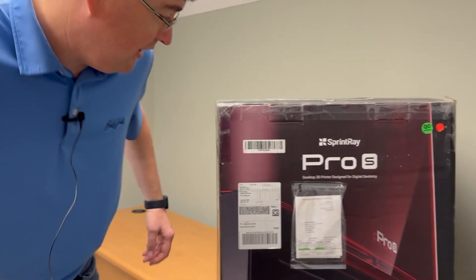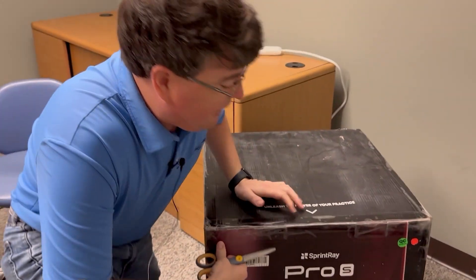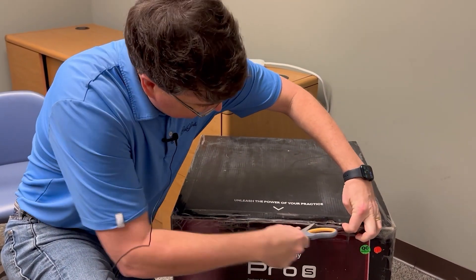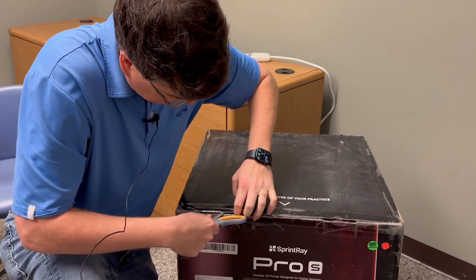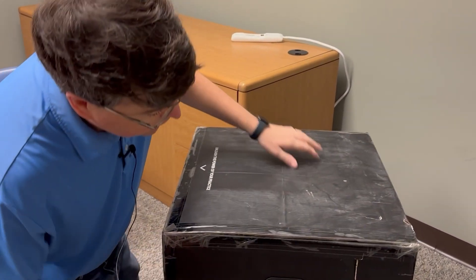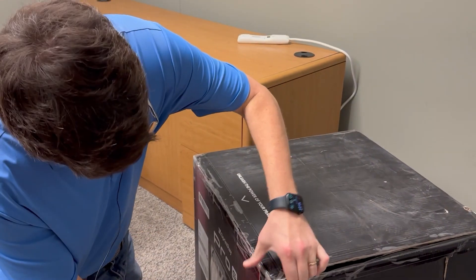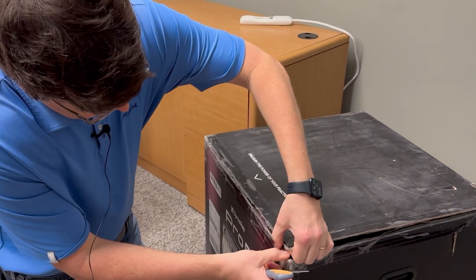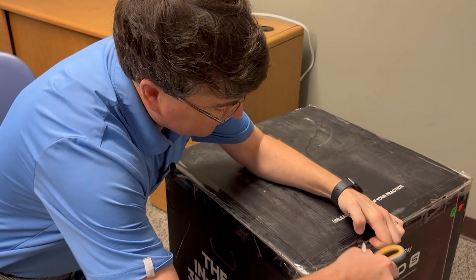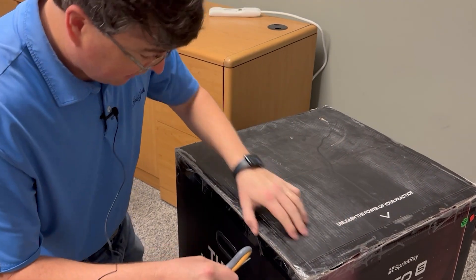First thing, let's get it down on the ground. I've got to get all this tape off. This thing has just been sitting in the floor of my hallway for a week or so, and I know that's how most of you guys do it. Sprint Ray certainly puts lots of good tape on here. If you've got a nice big knife that might work better — of course it's also easier to cut yourself. They really do not want this thing to get damaged, do they?